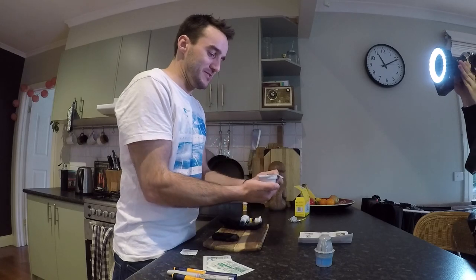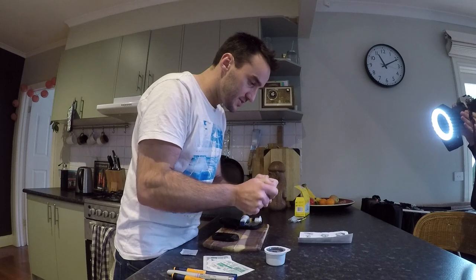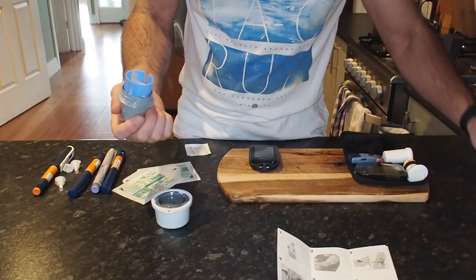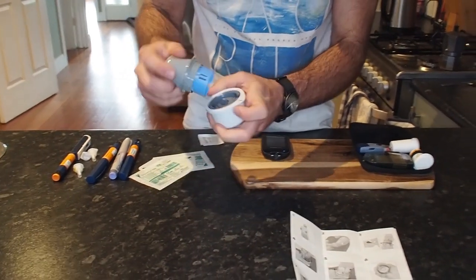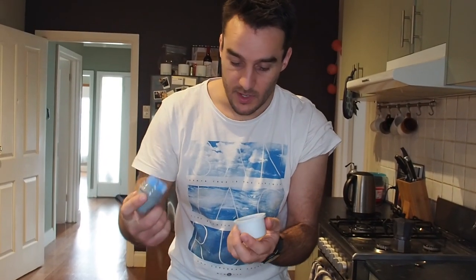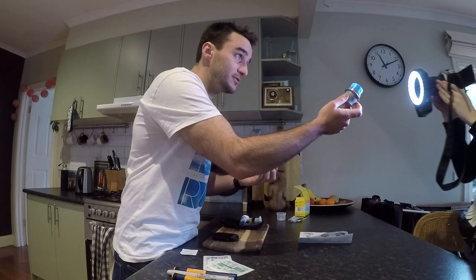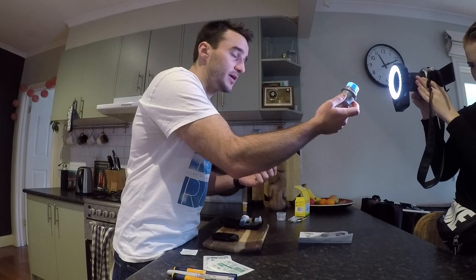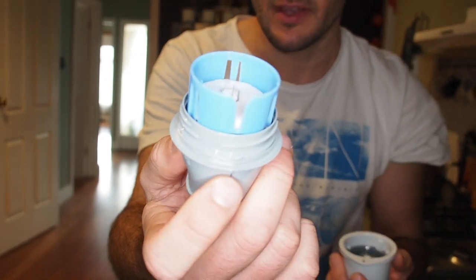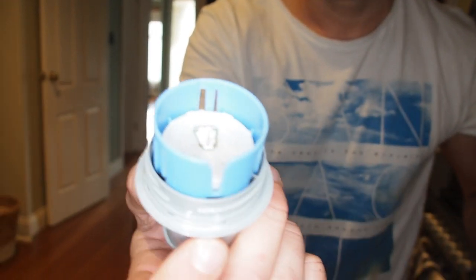I'm going to go with my left arm. Open up, more packaging, and twist this — right, so we bring these together and now it's ready to inject. Zoom in on that needle. So that will be going under the skin, but it will also be leaving a little wire that will be checking my blood constantly. Don't be scared of it — it doesn't really hurt.